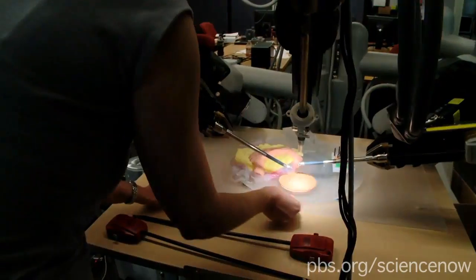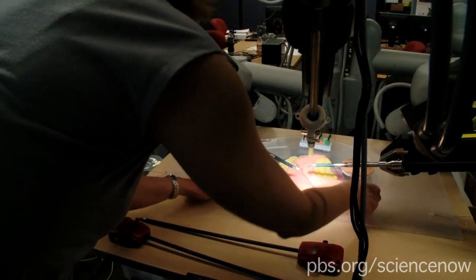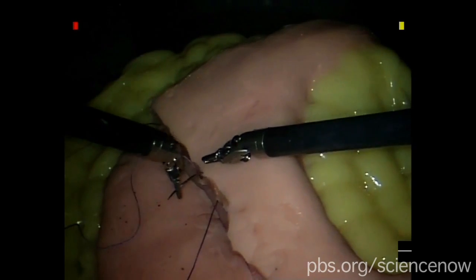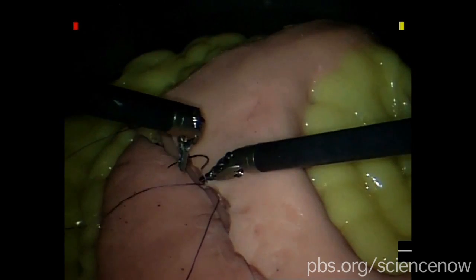Now I'm going to rotate it over to a fake stomach. Oh nice. Do you know how to sew? No. Now's a good time to learn. When you pull the string through the tissue, do you feel that at all?